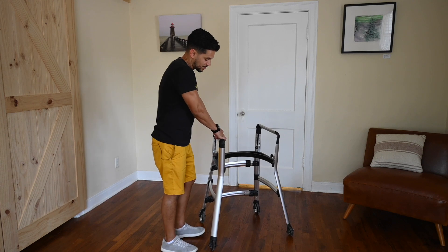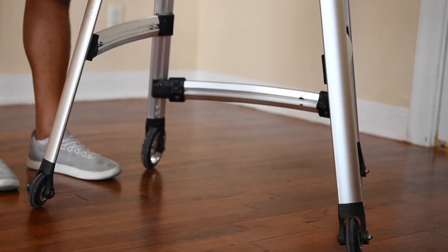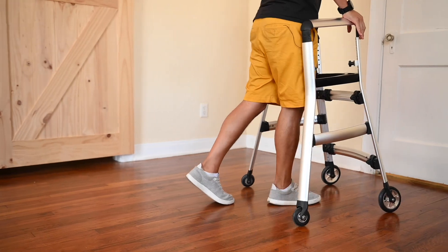The backside is wider than the front, therefore providing more stability and less risk of tipping from side to side, in addition to the 28 pounds of weight that it has, ensuring that the walker stays grounded to the floor.